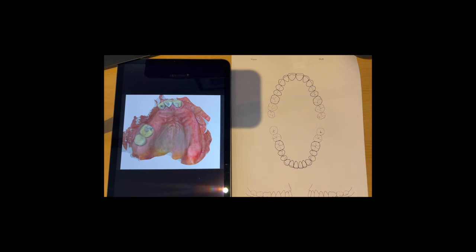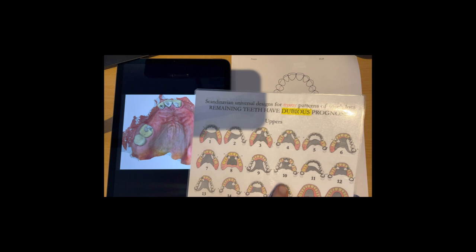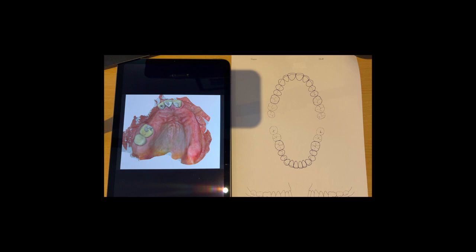I just got this through today. This is a dentist that asked me to map out a design because on these various patterns of tooth loss that I have on here, there's nothing that fully corresponds with that. And this is a really good point actually.